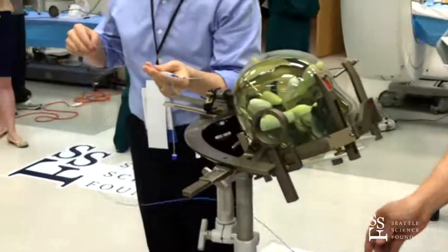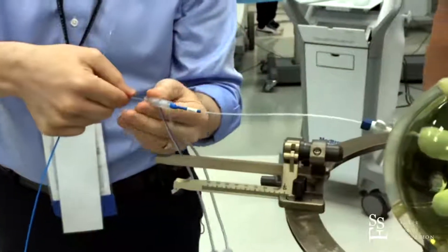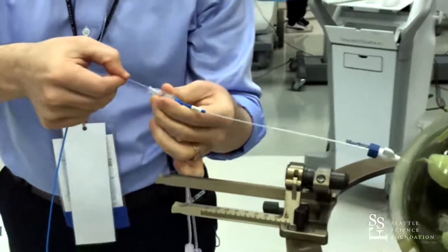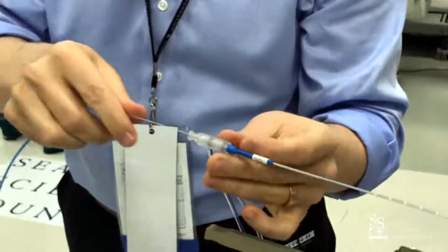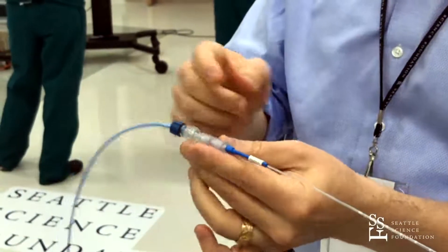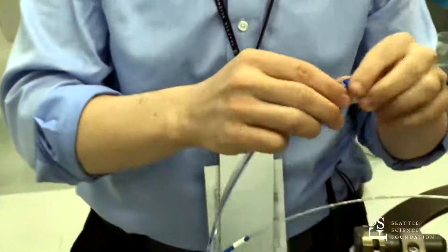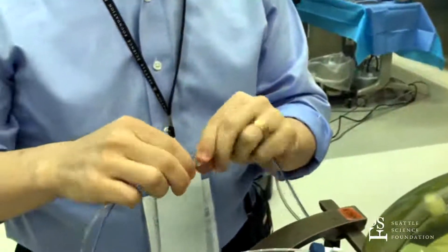This is, of course, all a sterile stereotactic procedure if this were a real person. The fiber feeds down into the cannula. A stereostrip has been used to measure when it fits down to the very tip, and then we pull it back just a little bit. This hollow tube has the ability to circulate saline around it to keep it cool — that's what these connectors attach to. Blue stripe to blue stripe, clear to clear.